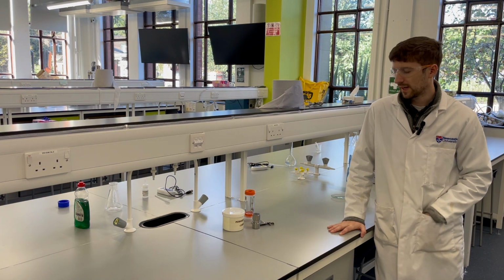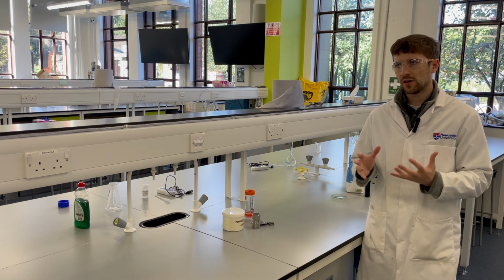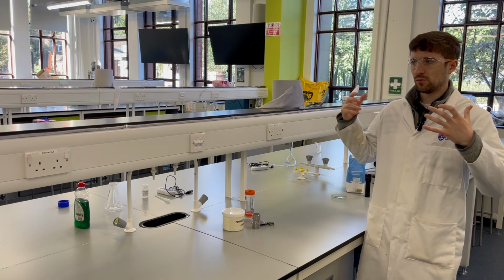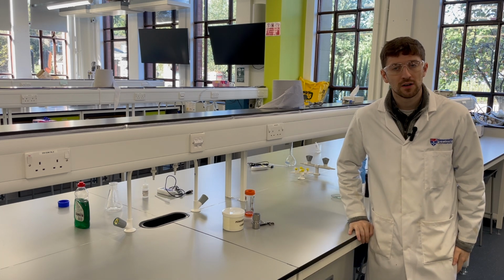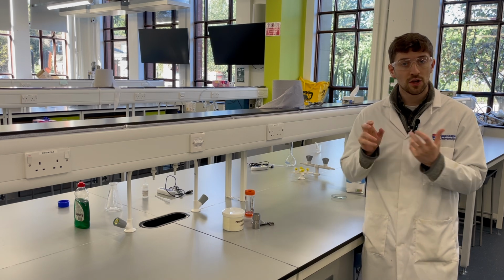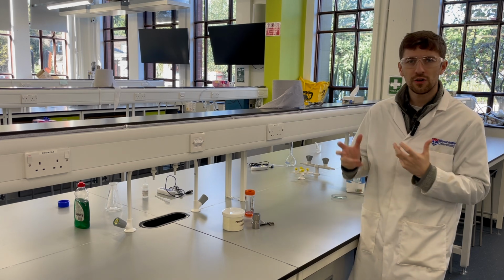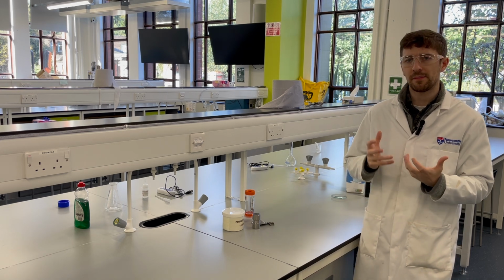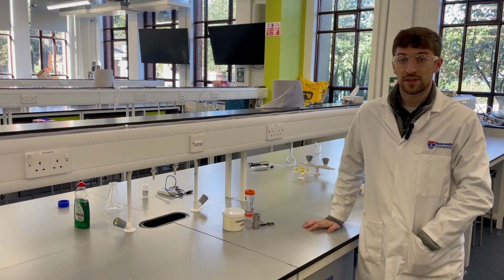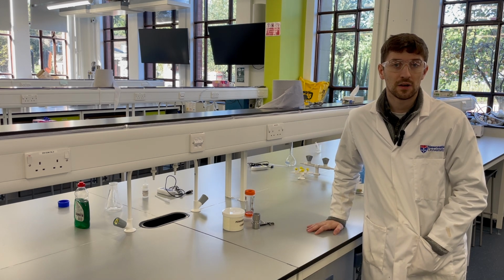In this next experiment, experiment 3, we're going to be thinking about how the MDI, in particular the metered dose inhaler, which produces that high velocity of solid, or that powder or atomization through the inhaler, that high velocity going into the back of the throat, how that can create charge, and maybe how that charge can affect the efficiency again of delivery from our various inhaled products.